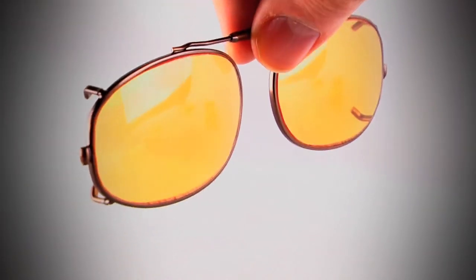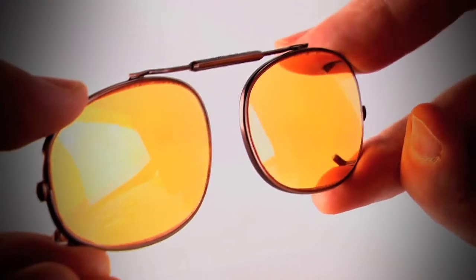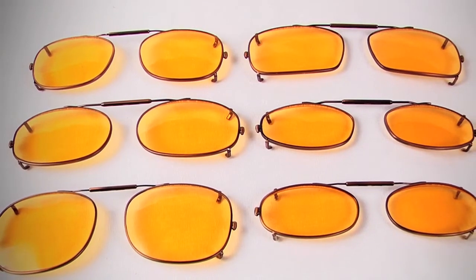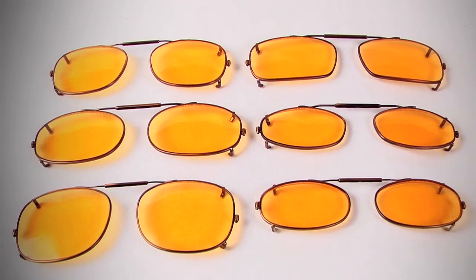The clip-on frame is made of durable stainless steel with plastic-coated clips to keep your lenses scratch free. The patented spring-loaded bridge makes attaching your clip-on simple. With a variety of shapes and sizes, Cyber Clip-ons will fit virtually every frame on the market, including rimless.